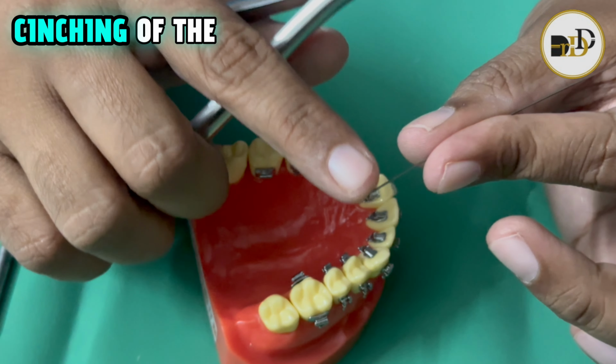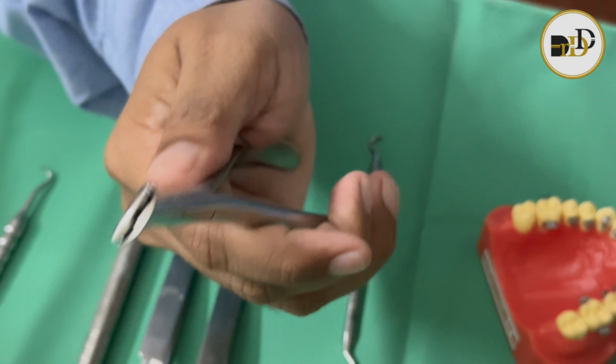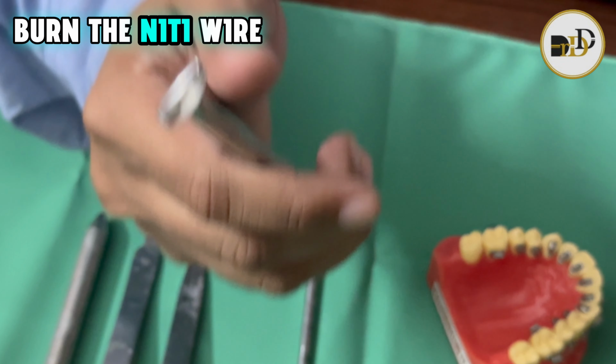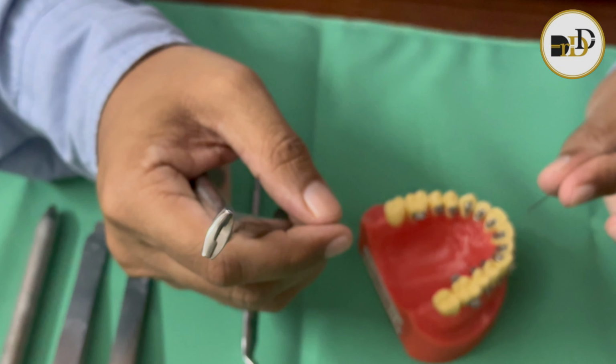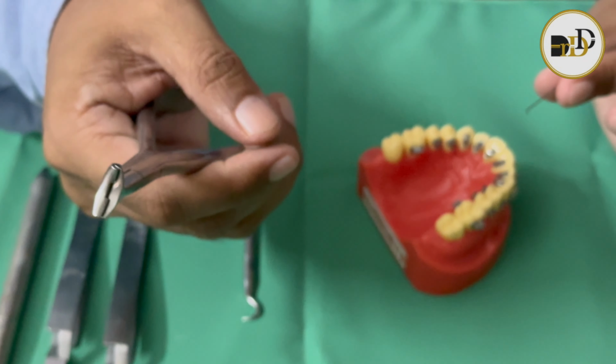So for making the cinching of the wire, this is a very useful instrument, and the main advantage is that we don't want to burn the nitinol wire for making the bend. If you burn the nitinol wire, automatically the properties of the nitinol will get loosened.